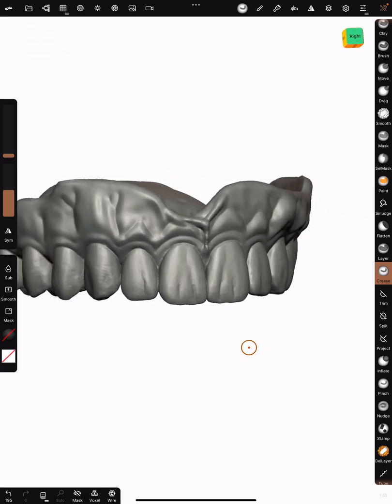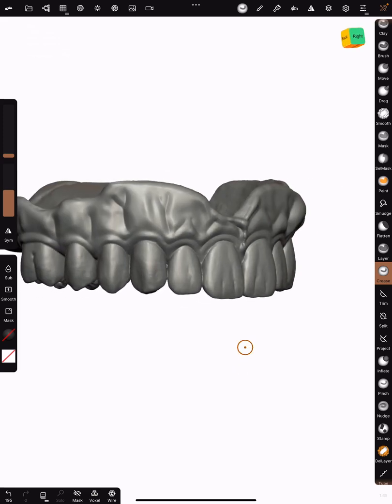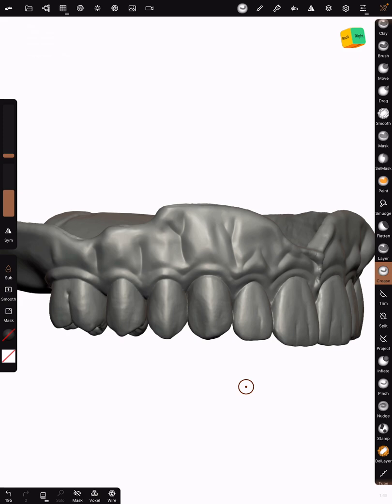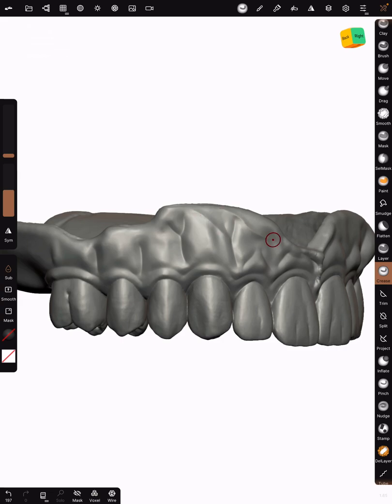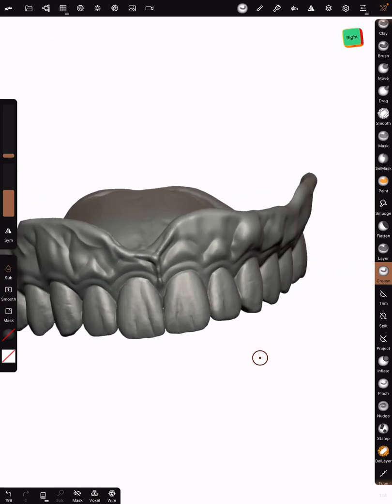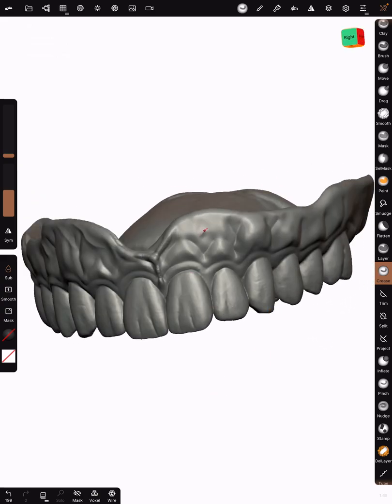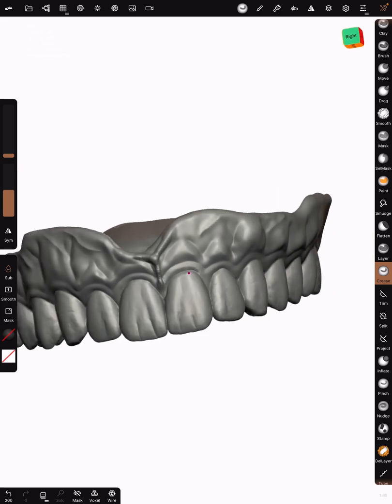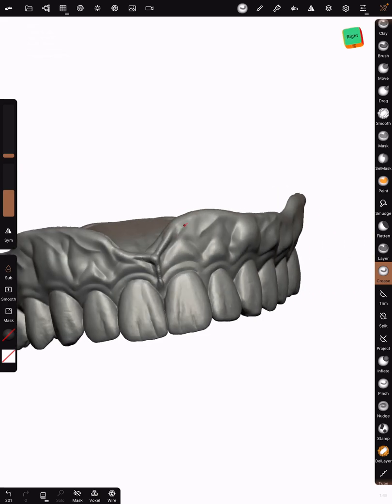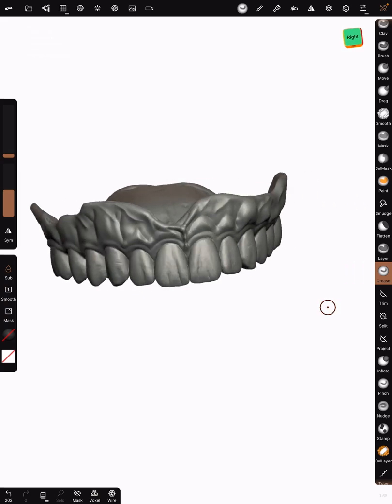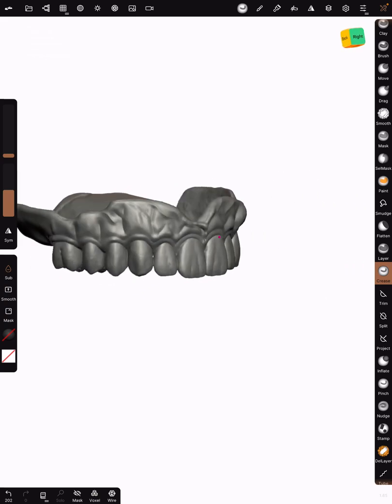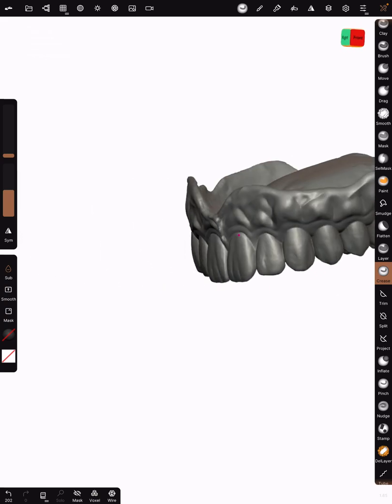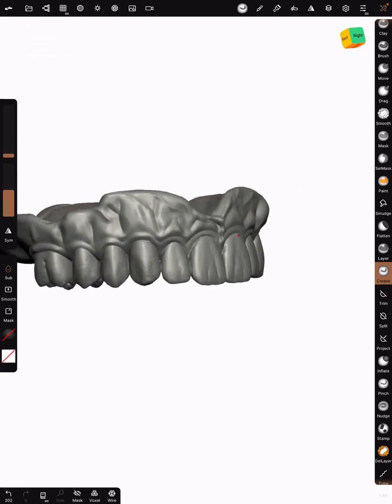The one thing that I'm going to do now is add some tissue stretch marks. I'm actually going to go to crease and I'm going to hit the subtract, which means basically it means opposite of what it was doing. If crease is making a crease, now it's going to make these little kind of venules. I'm just going to kind of put ones right about here, maybe one right there. Now it's looking like this is a juiced up denture here.